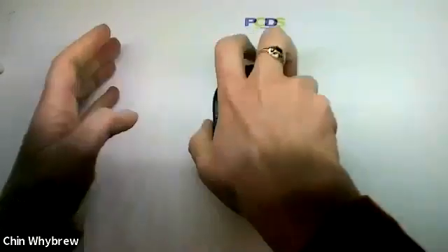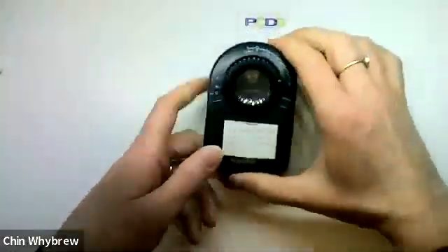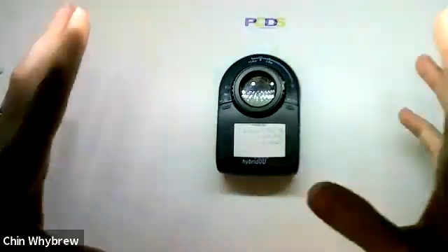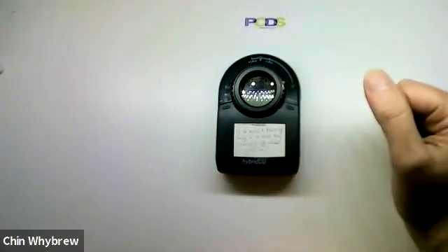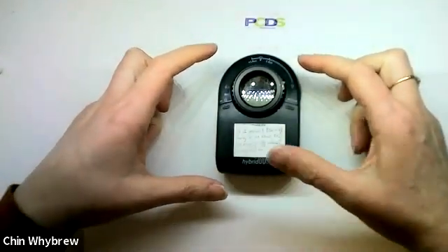It's a very good size, easily handheld. It does not come with its own pocket or case of any description, but there is a leather case available.